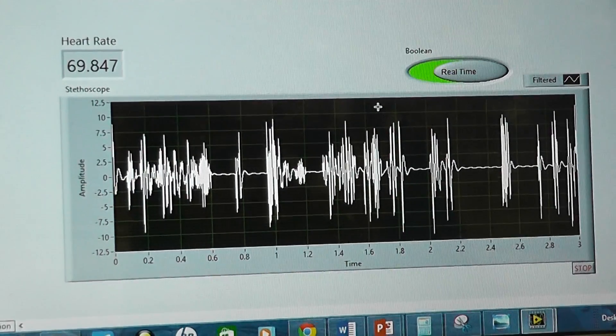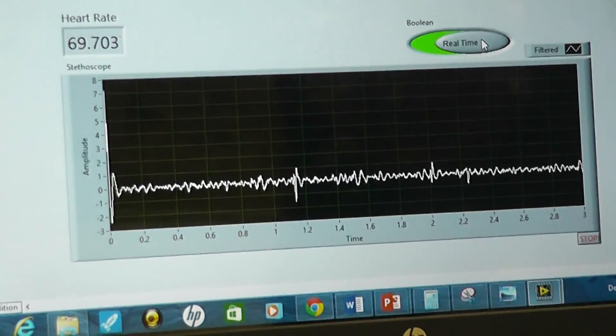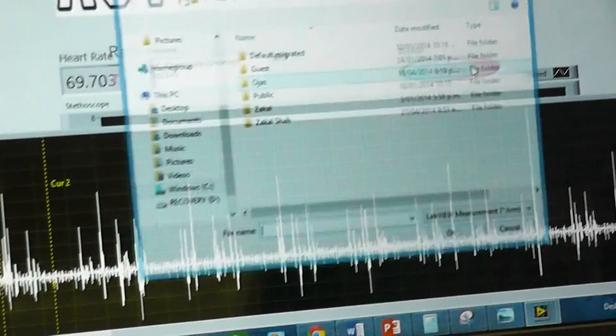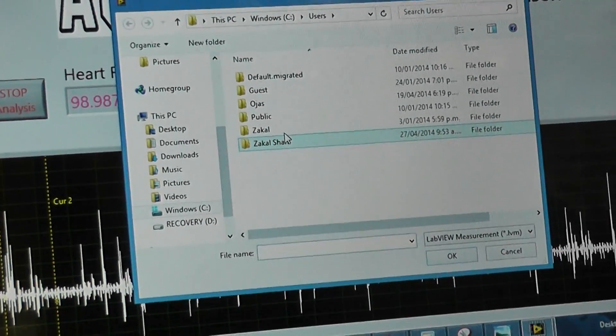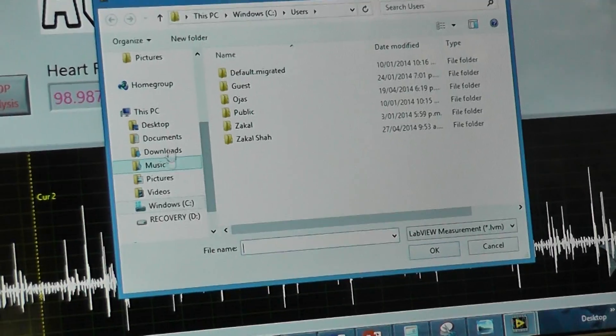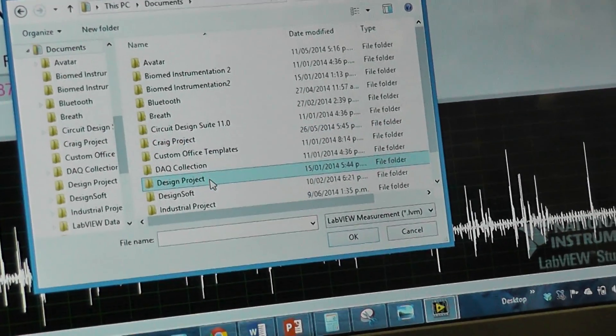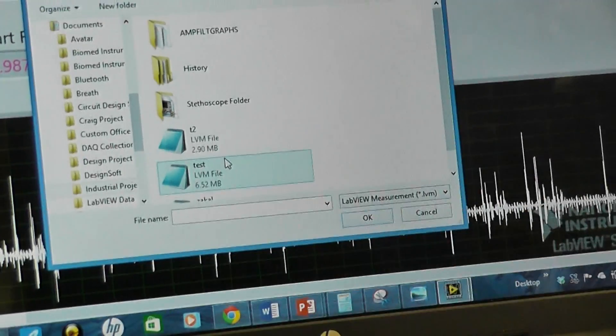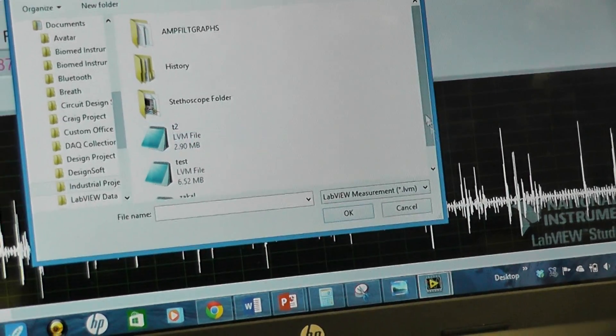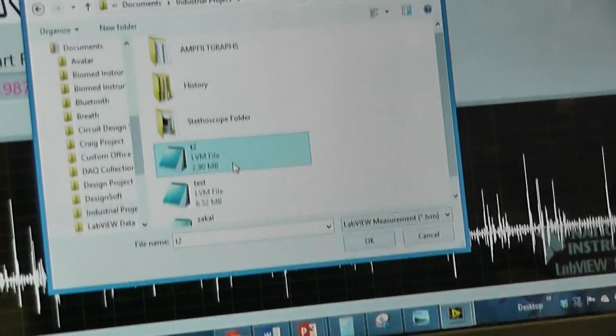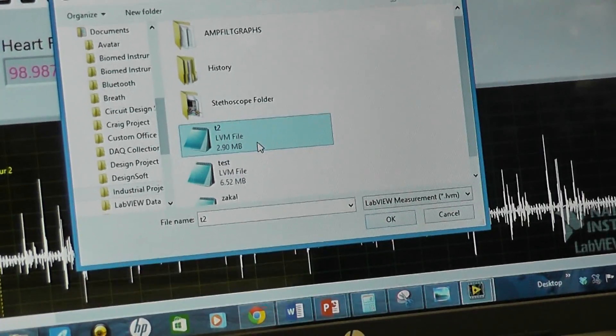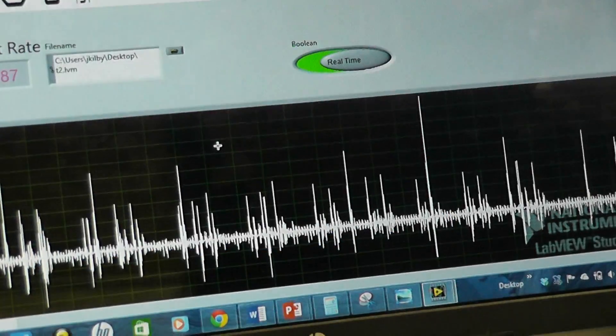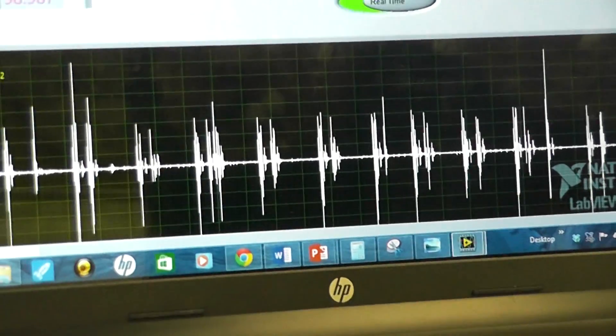And then the other part of my software is... if you go in playback mode, it will ask me to choose a file. And I will just choose a file which I've already recorded, industrial project. Yeah, so these are the files which were recorded previously, and I can play any one of them. Oh, these are LabVIEW files. Yeah, LVM. Binary. LabVIEW measurements. I could record in Excel as well. It's just a matter of choice. And there, so this was a recorded one.